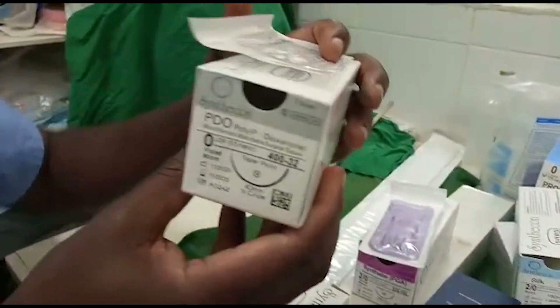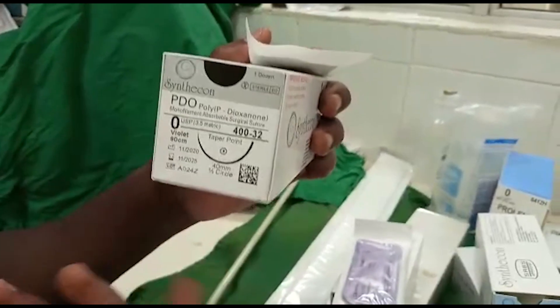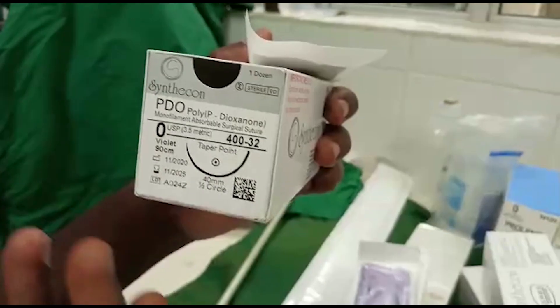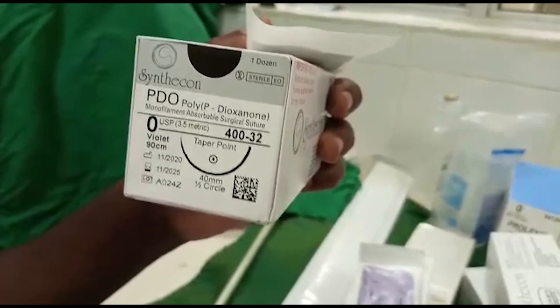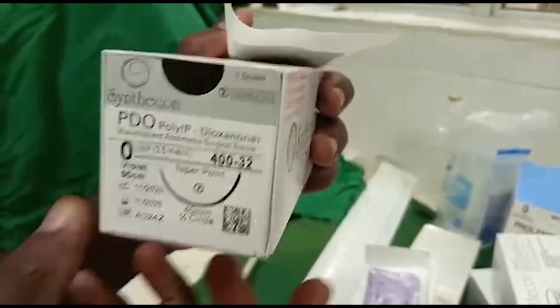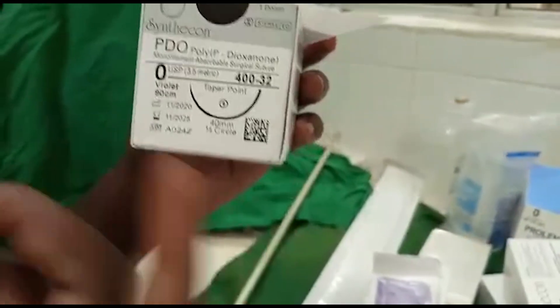Lastly, we look at PDS. They come in sizes from 4-0 and 5-0 all the way through zero.